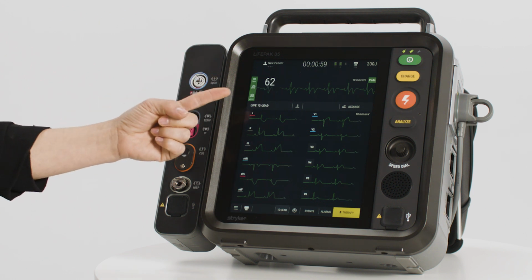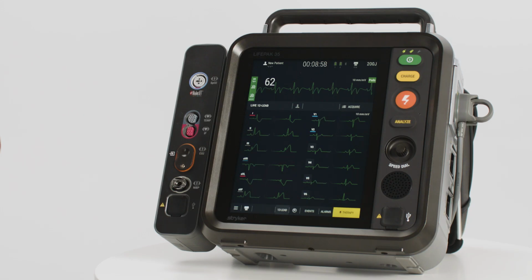Live View allows you to evaluate the quality of the ECG signal prior to acquiring a 12-15 lead ECG. When in Live View, ensure the leads are good quality and free of noise prior to acquiring a 12-15 lead ECG. Within the Live View, you can change the labels to indicate where the lead is placed.